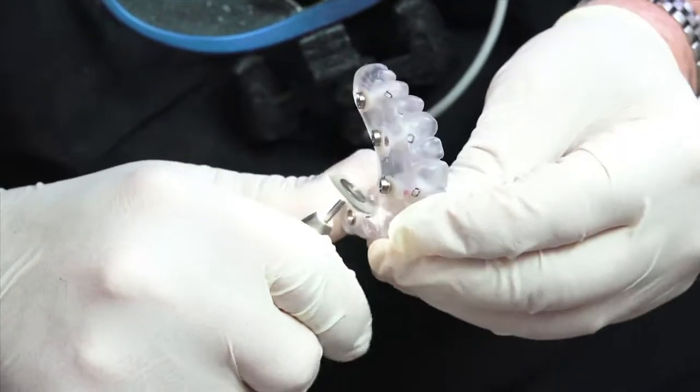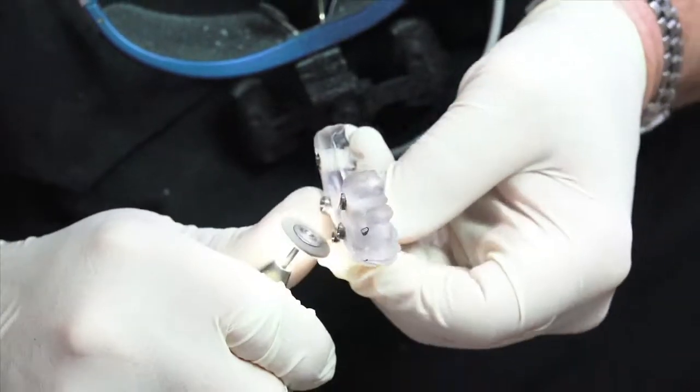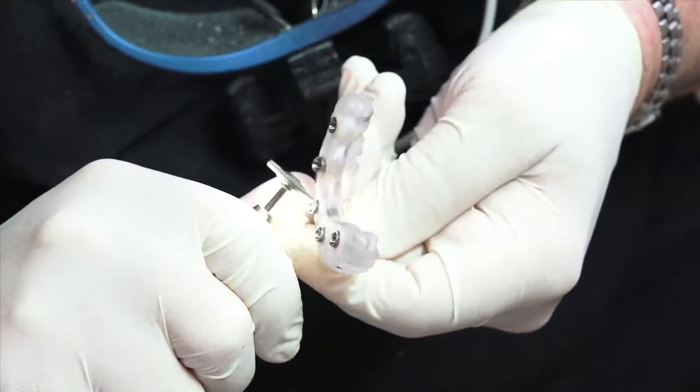The finishing of the clear duplicate bridge can be done at a later time if desired. High shining of the clear duplicate bridge is not necessary.